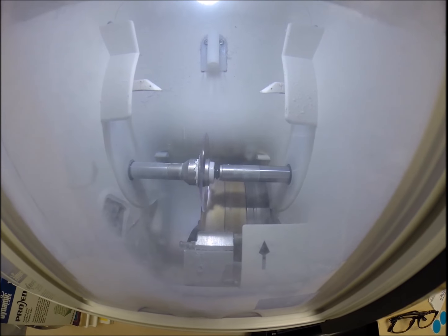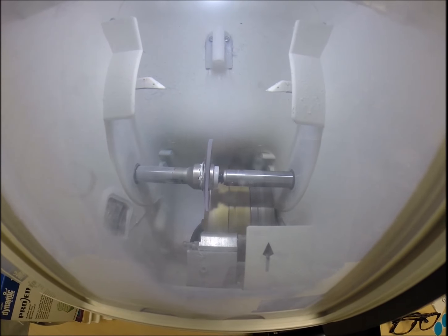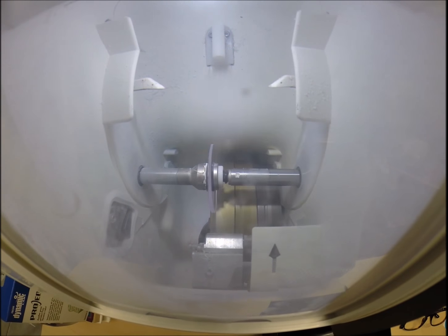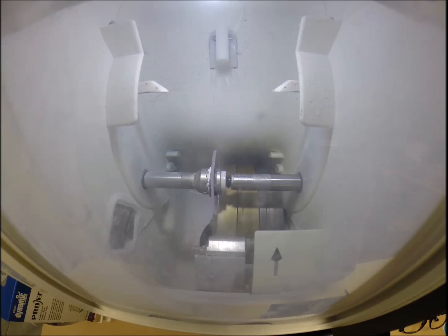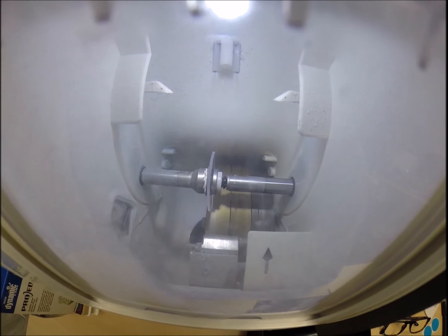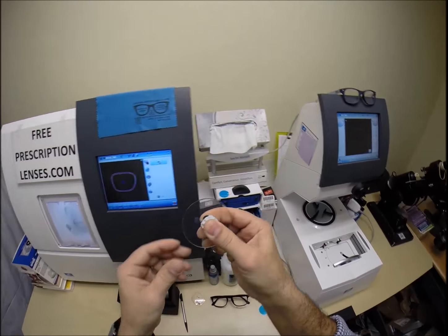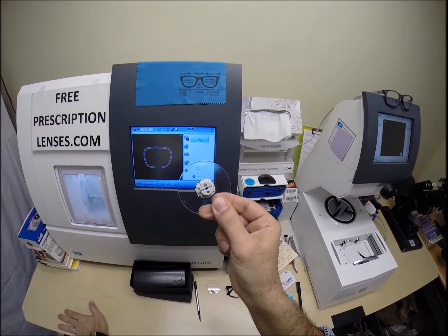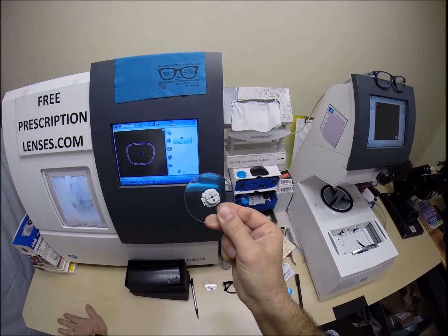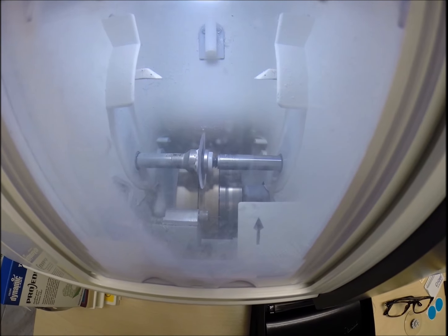I need a double-sided adhesive sticker - I'll get two fresh ones. Every time I get a pair with anti-glare, the lab sends me these stickers. They go onto the back of each lens and hold it in place in the chuck so it doesn't slip. With older edgers that's more critical, but these newer ones actually know the strength to compress at - it's a smart technology. The old dumb edgers that are still out there - this industrial equipment lasts for 20 years - but the new $40,000 edgers let you barcode stuff and have it programmed into memory. I put the double-sided adhesive sticker onto the block. On the back is a silver button that is a magnet that will attach itself to another magnet in the arm.